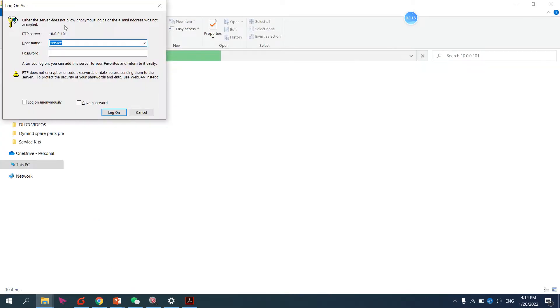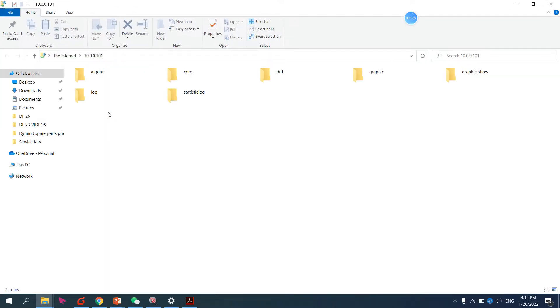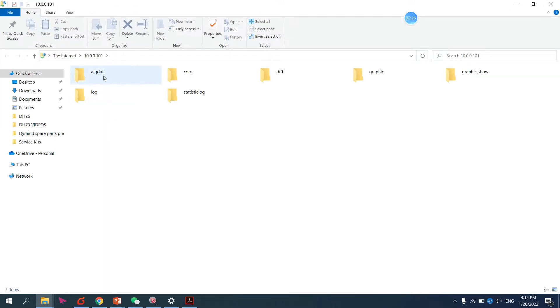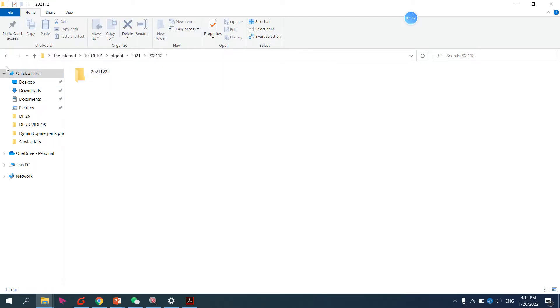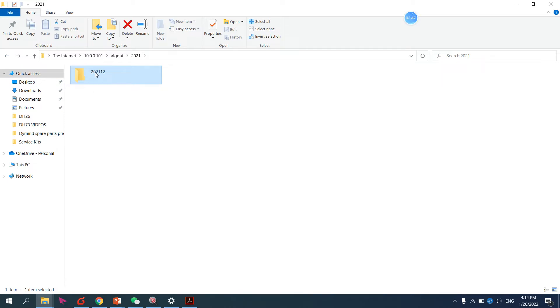Let me show you. After logging on, this is the folder 'algdat'. Open this. If you have many results here with too many folders and subfolders - I already deleted mine. If you have other folders, just delete them. If you need the most important data, keep it. The other folders you can just select and delete.